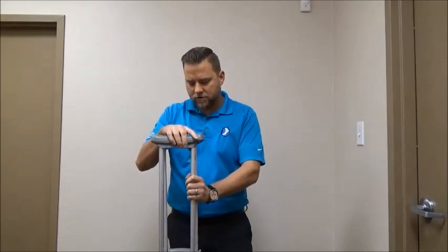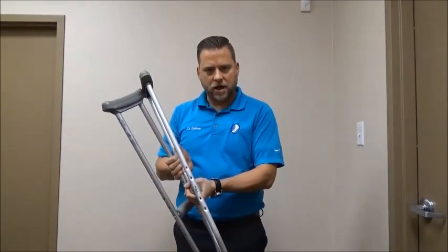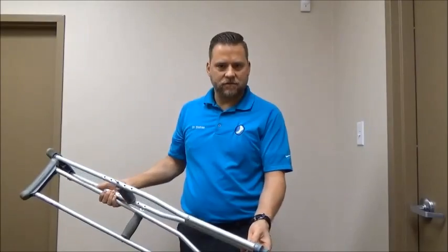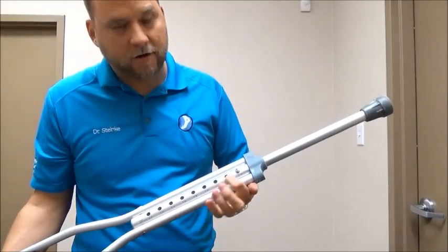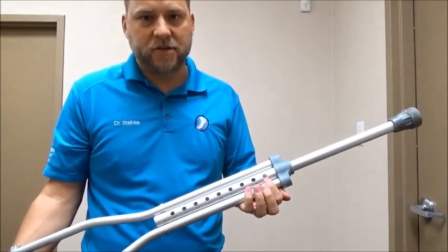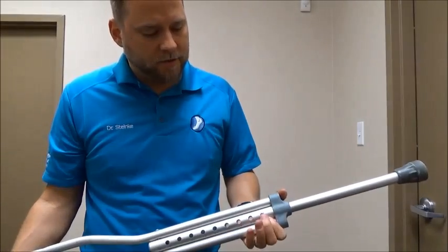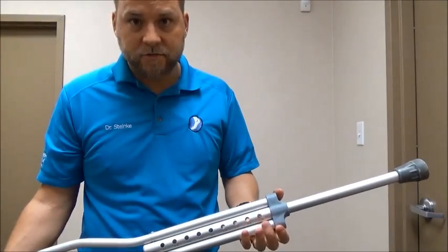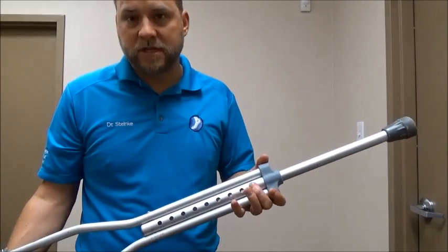First and foremost, when fitting yourself for a crutch, there are a couple of things you have to adjust: the place where you apply your hands, and also the length of the device. If you look at the bottom of a crutch, you can see small numbers that indicate how tall the patient is. These aren't perfect, so you still have to fit them by height. In this case I have it set to 5'10", which is appropriate even though I'm 5'11".